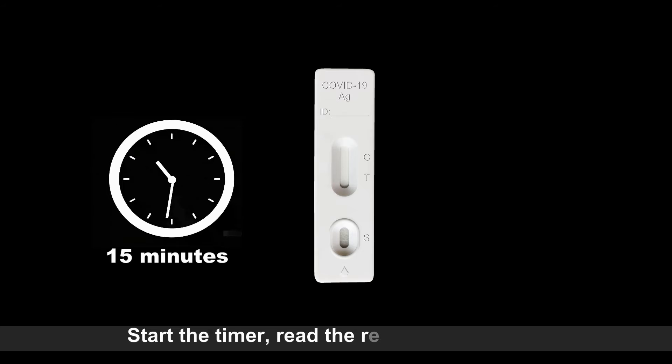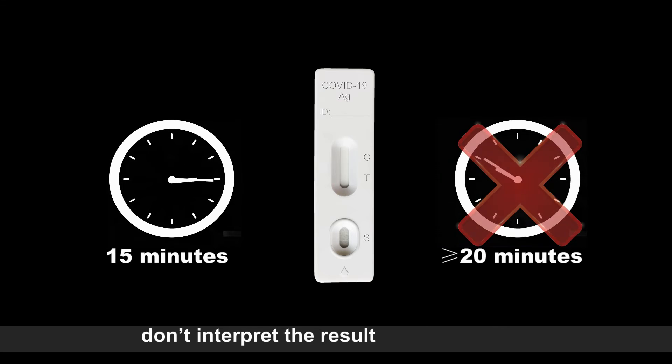Start the timer. Read the result at 15 minutes. Don't interpret the result after 20 minutes.